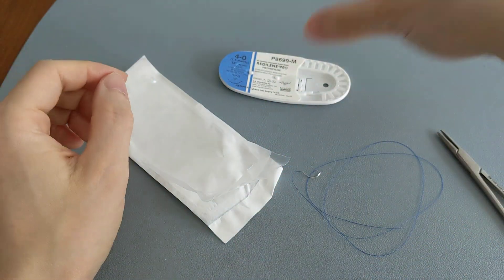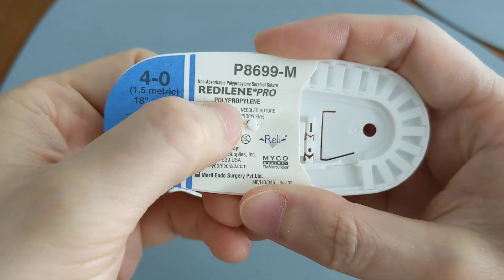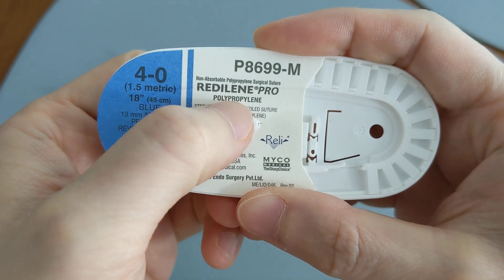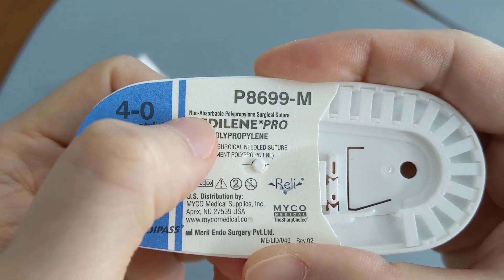So these are our blue stitches and let's just read what it says here. These stitches are synthetic and they are made of polypropylene. Okay, and then if we look right up here it says non-absorbable.